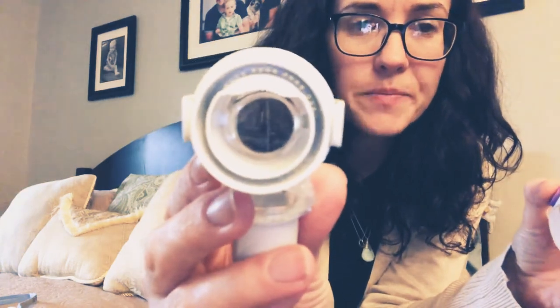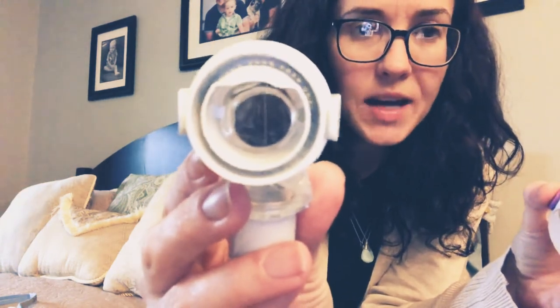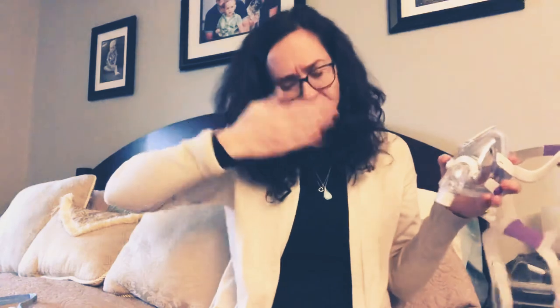I'll pop this off so you can actually see inside — see the little holes there. The air comes out of there, you can really feel it. If you're a side sleeper and the air is blowing out hitting your pillow, it reflects back. So when you put your mask on and it's running, if you put your hand up, you're always going to feel that air blowing. You have to have it.